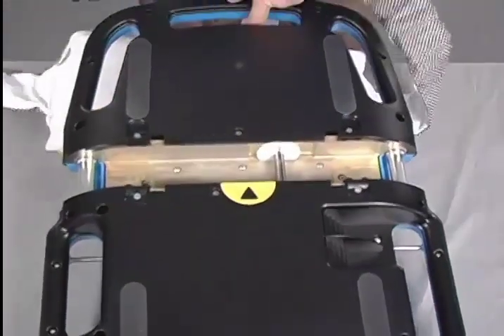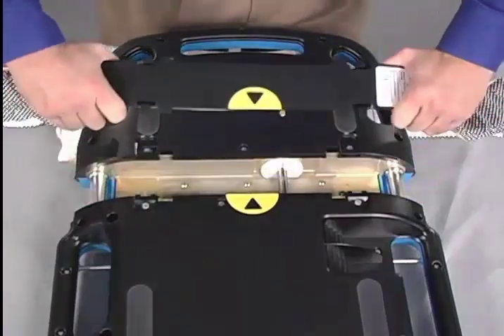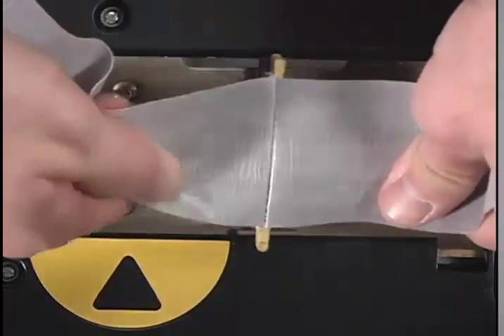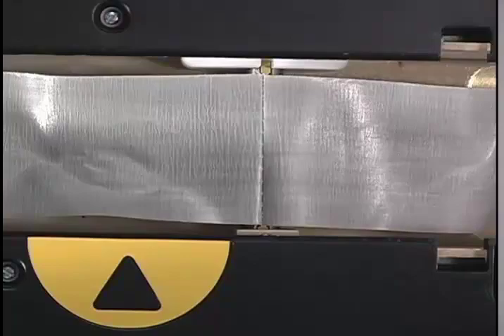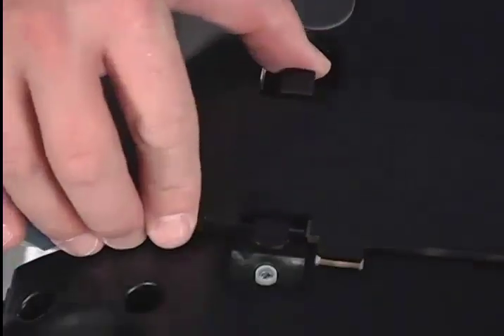To install a new lifeband, align the graphics on the cover plate. Insert the top end of the band clip into the driveshaft. Push down on the tail end of the band clip past the guide plate. The band clip should be seated flush in the driveshaft. Lift up on the band guards and lock the cover plate into place.